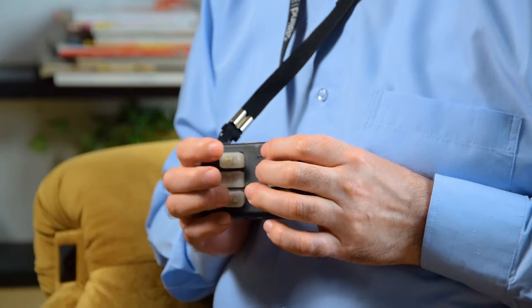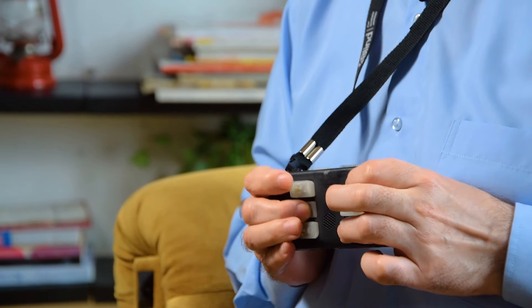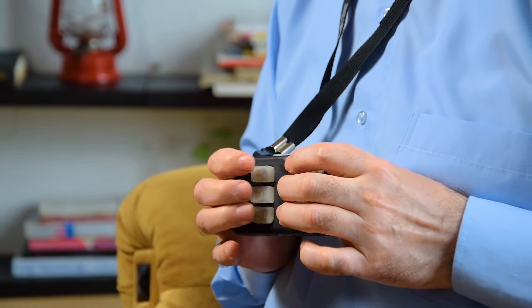Suppose the deafblind person cannot speak, or the interlocutor does not understand them well enough. In that case, they can use the communicator to hear what the other person says and also say something themselves. To do this, they switch to the say mode and type text using the keyboard on the front panel.